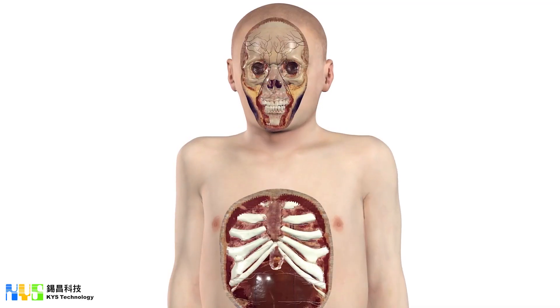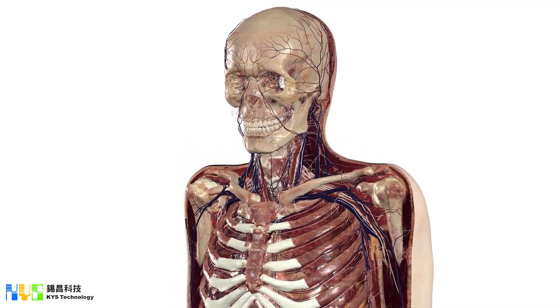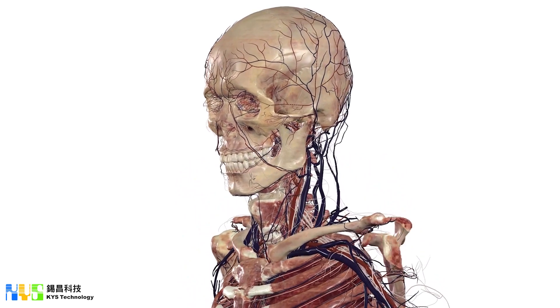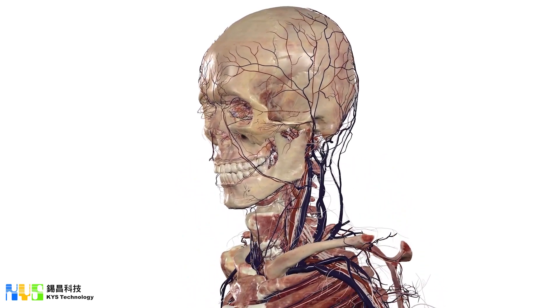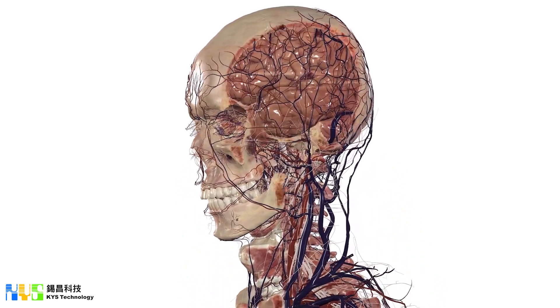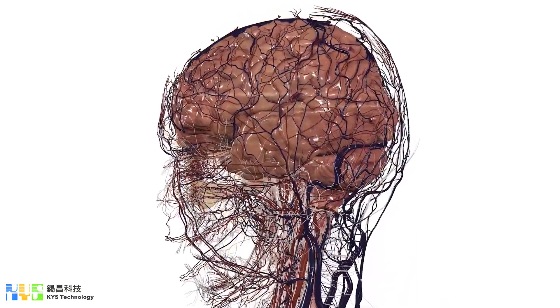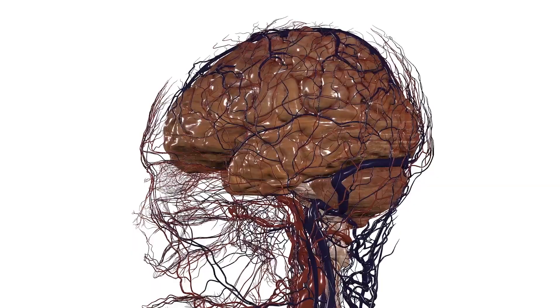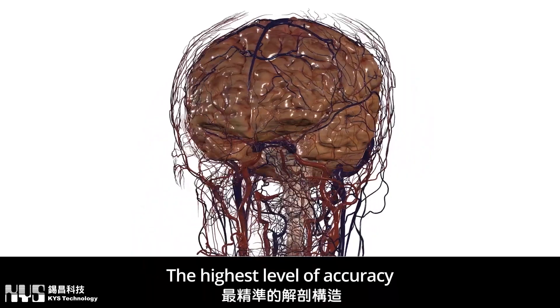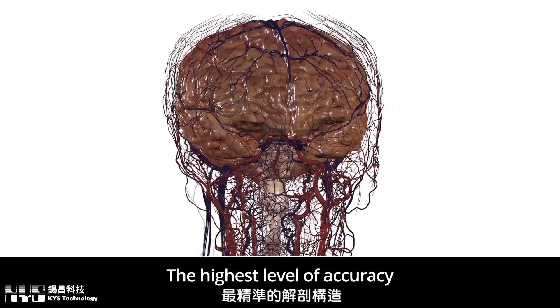Every life has a story to tell. With Anatomage's Table 10, a journey through all stages of life is now possible. In its 10th iteration, Anatomage Table takes anatomical learning to the next level with refined technology and the highest level of accuracy.